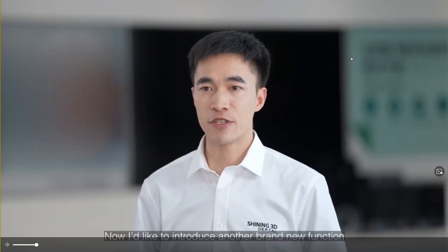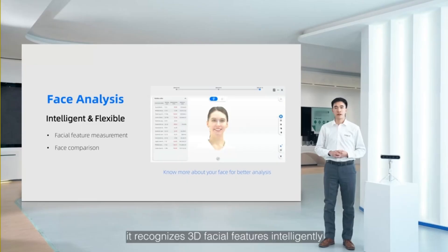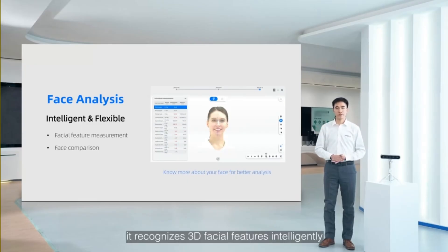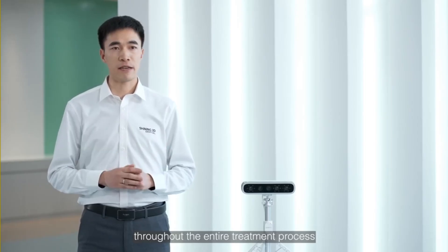Now I'd like to introduce another brand new function: Face Analysis. It recognizes 3D facial features intelligently and offers measured values in multiple templates. Moreover, this system supports the comparison of facial data throughout the entire treatment process.